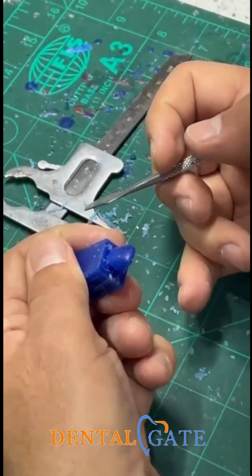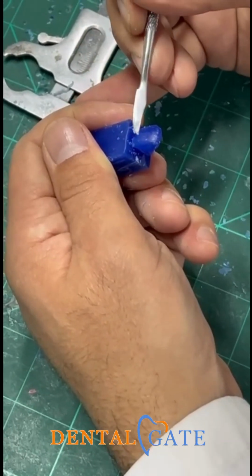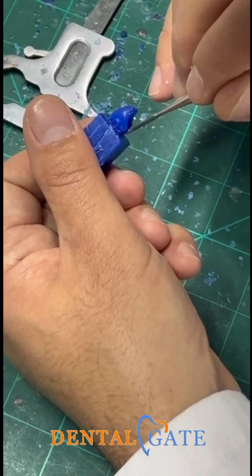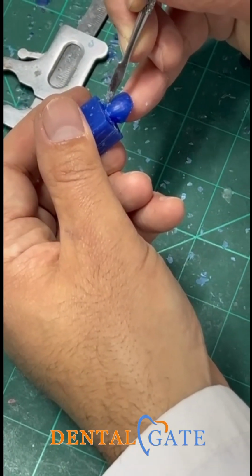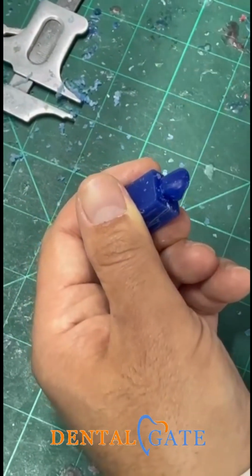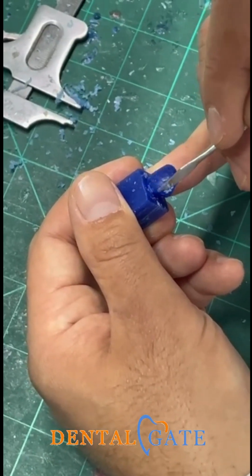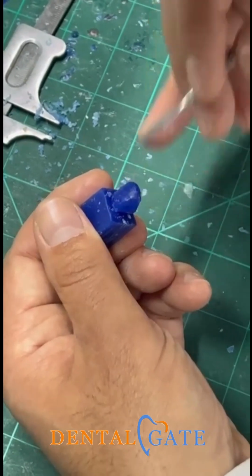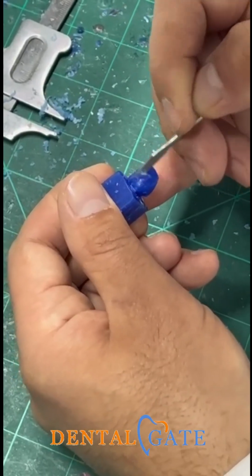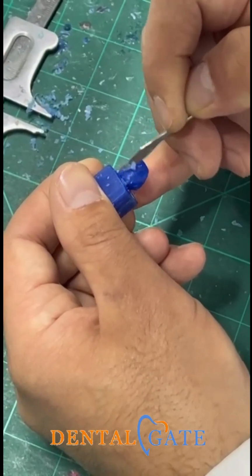So how can I control this curvature? This is very easy. I have the reference point here, the maximum coverage, regarding the labiolingual measurement. So I don't remove any wax from that point. After that, I will make a roundation in accordance with the principles of the lateral. So we have a roundation shape in the labial aspect. So just keep going to make a roundation to the labial aspect.